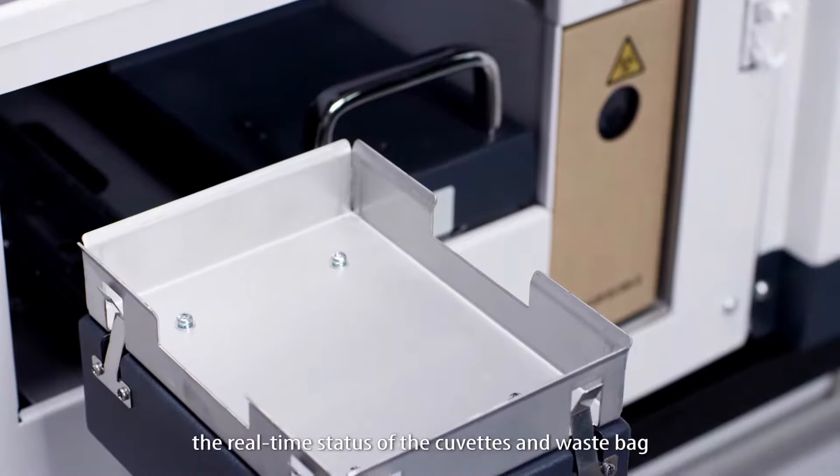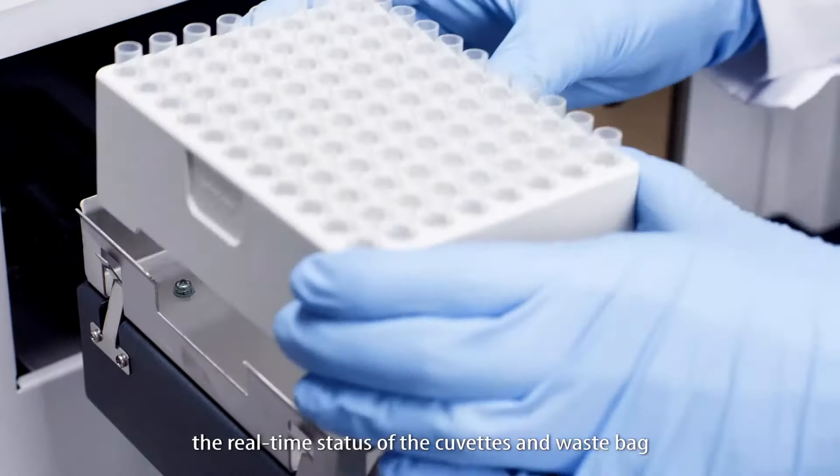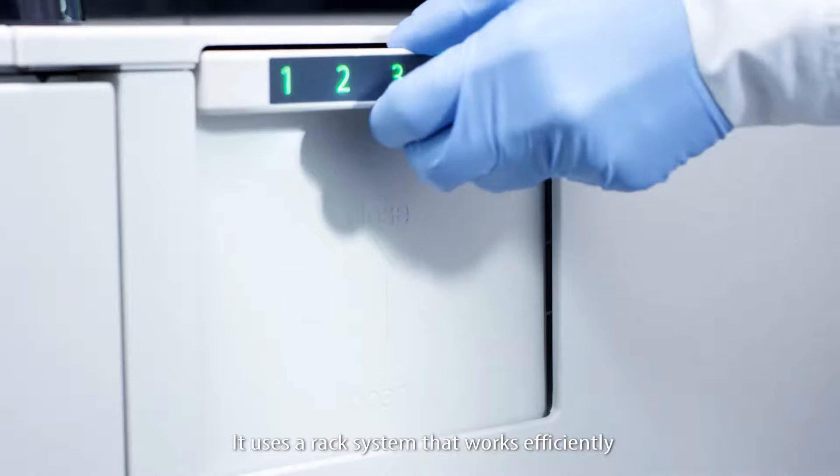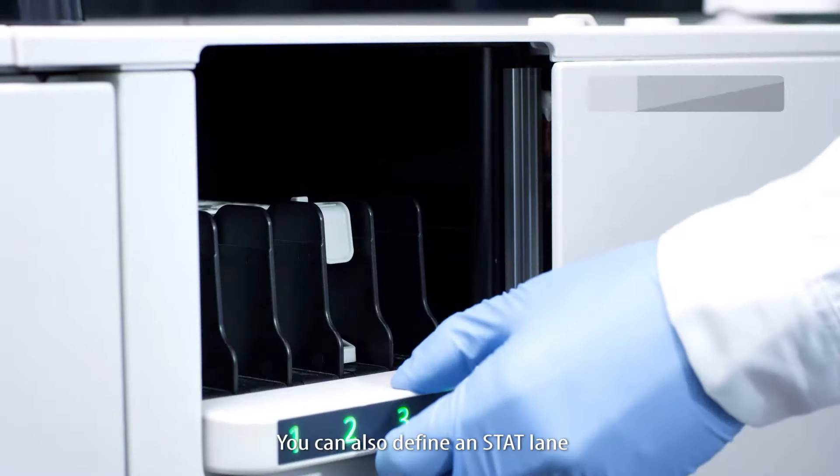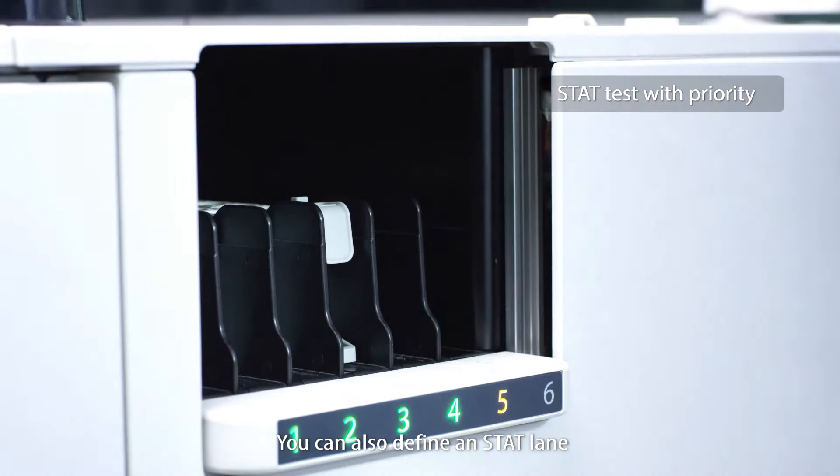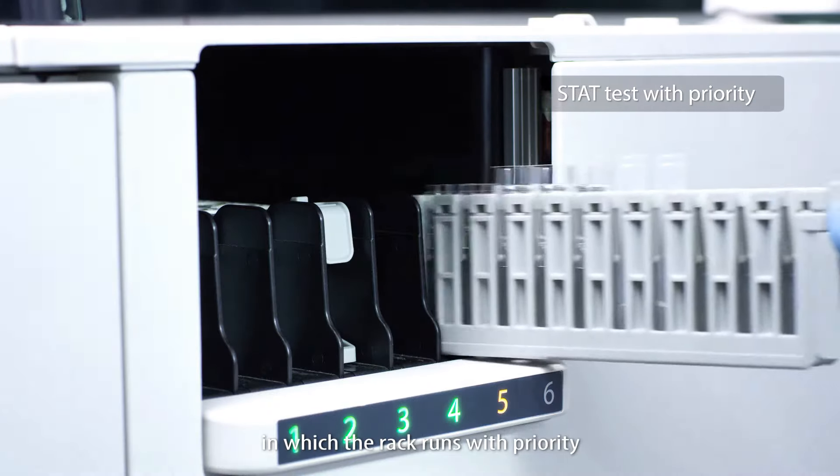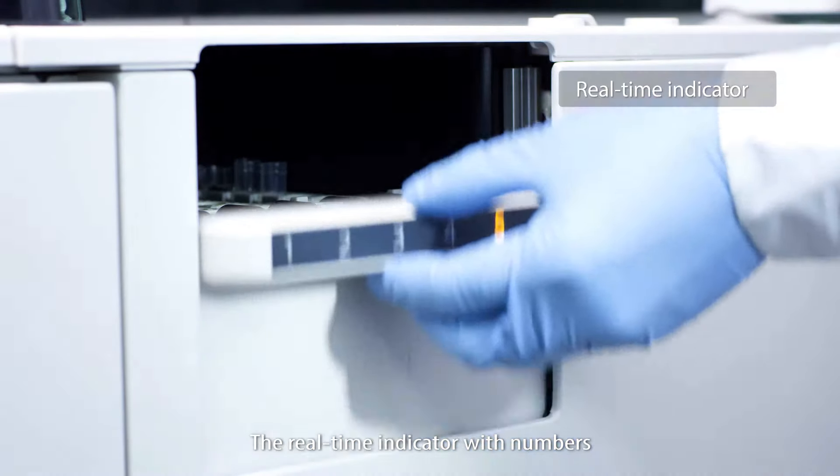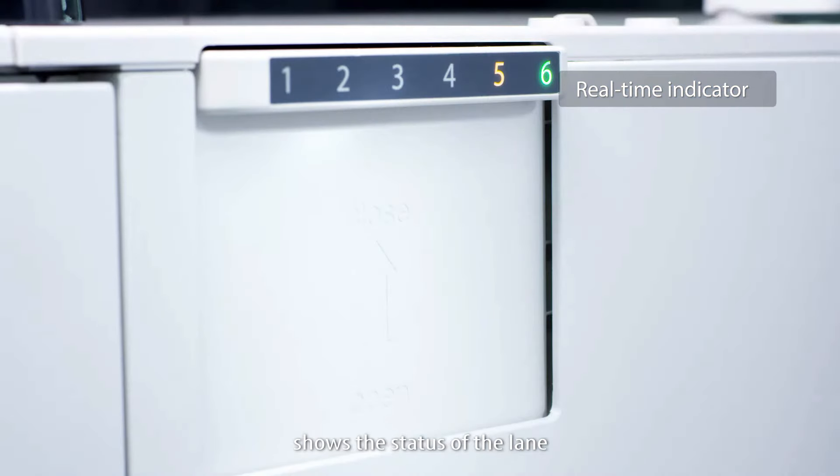It uses a rack system that works efficiently. You can also define a STAT lane in which the rack runs with priority. The real-time indicator with numbers shows the status of the lane.